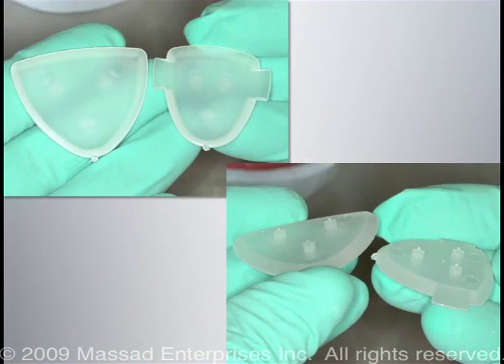As seen here on the upper left, we have the smooth side of the striking plate. This smooth plastic material surface allows the dome portion of the brass pin to move without resistance. On the lower right side, you will see the underside of the striking plate with 3 retentive projections to secure the resin used to mount on the base.